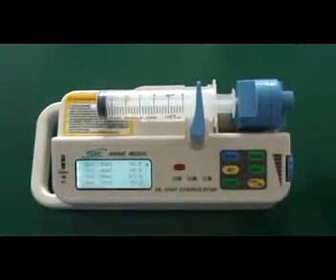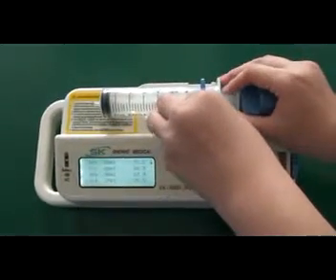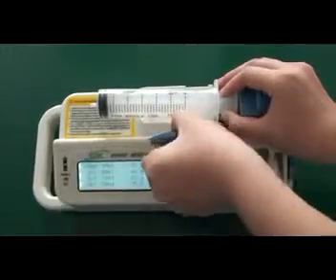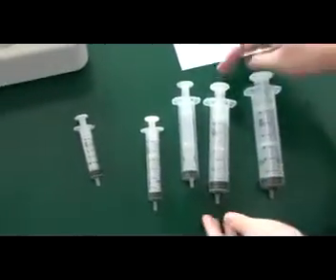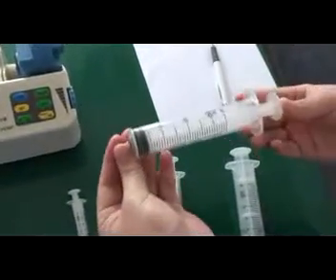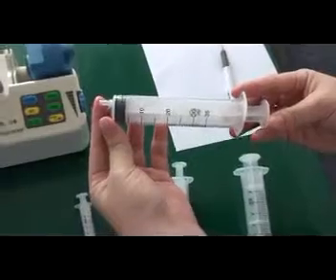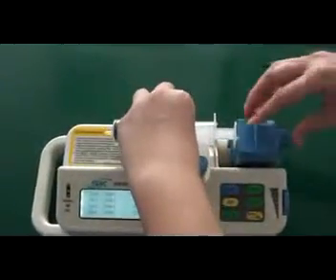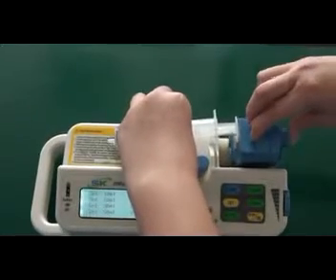Then remove the syringe. Turn it. Then set the parameter value for the 30 ml syringe. It's the same as fixing the 50 ml syringe.